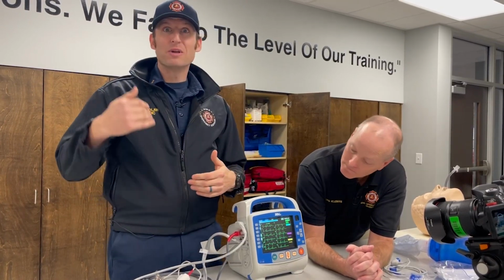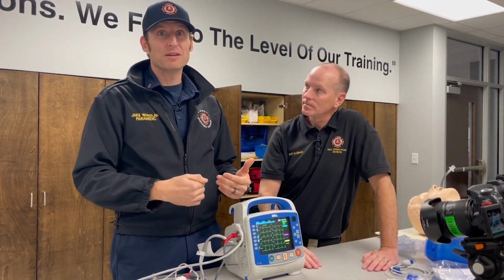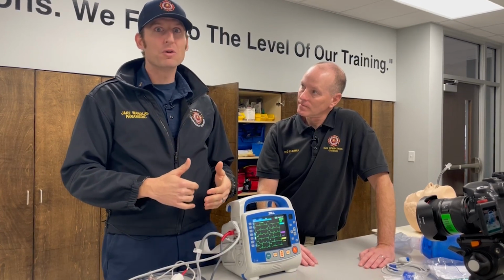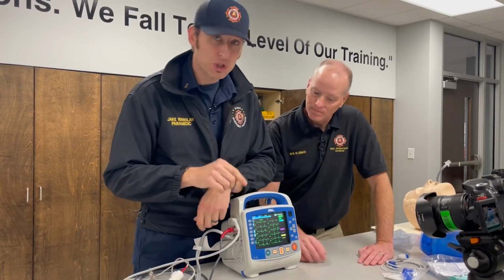We're teaching guys early. In recruit school, as soon as they go to the station, hey, this is your baby, this is your job, we get onto a patient that's having chest pain, we go to the 12 lead, you're going to put information in. Yes. They know how to do that. I can go ahead and tell you 9 times out of 10, when they learn that, they're going to go to the scene where it's applicable, they're going to go to this screen, and the very first thing they're going to do is hit the demographics button. So I'm going to show you that button right now.